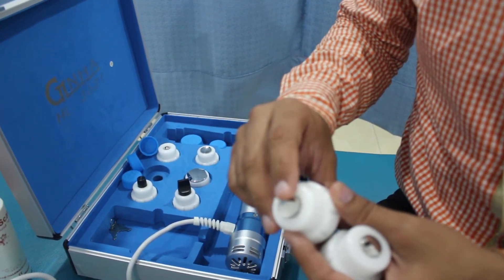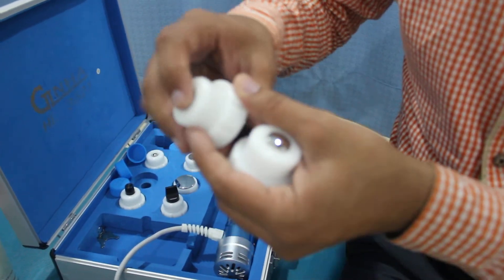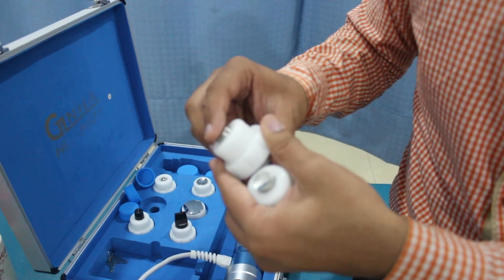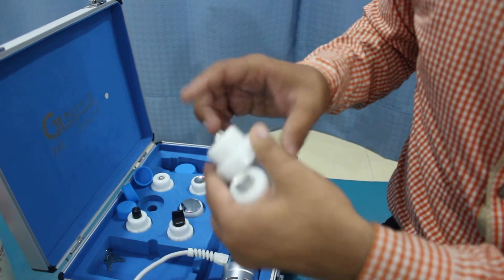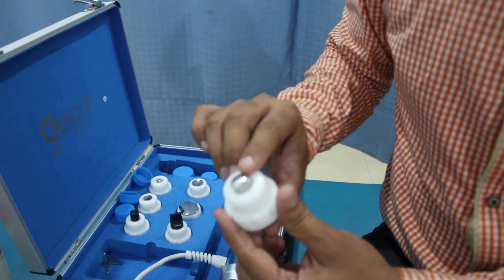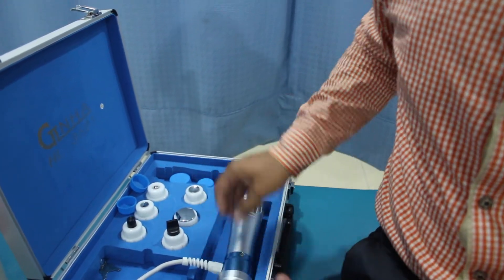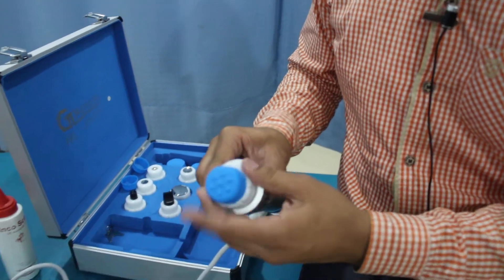This head is about 15 millimeters and it is convex. This one is also 15 millimeters but it is concave — you can see my finger is sinking in. Over here you can see it's protruding out; we can see the margination. So we will be using the convex 15 millimeter head. We apply the silicone cover and attach it to the unit.